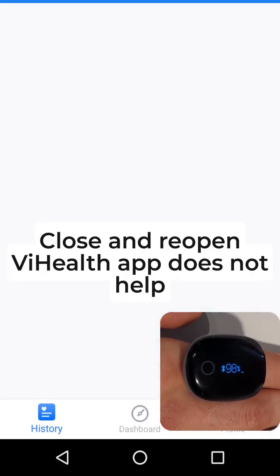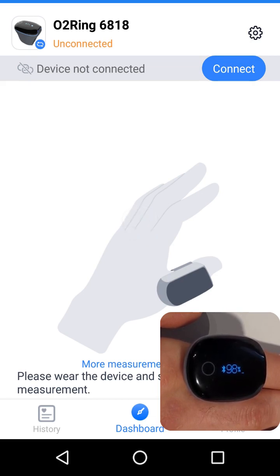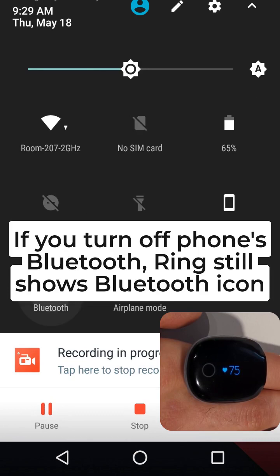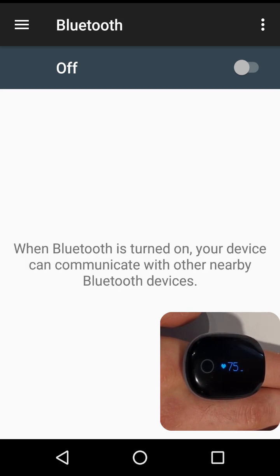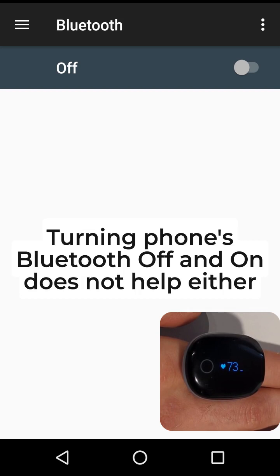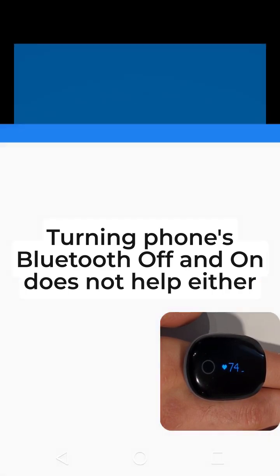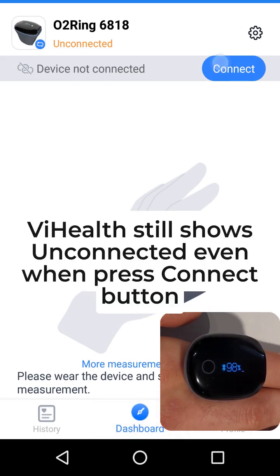Closing and reopening the Vi Health app does not help. If you turn off the phone's Bluetooth, the ring still shows the Bluetooth icon. Turning the phone's Bluetooth off and on does not help either. Vi Health still shows unconnected even when you press the connect button.